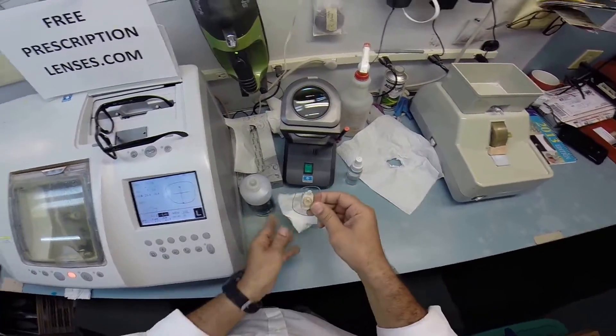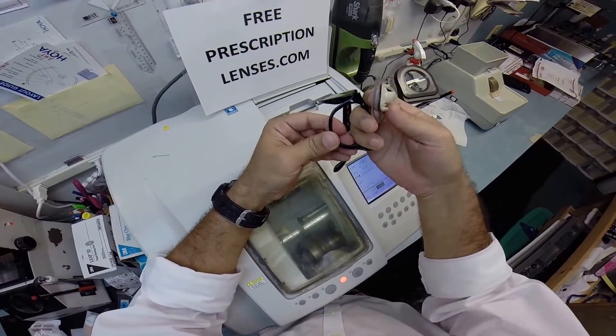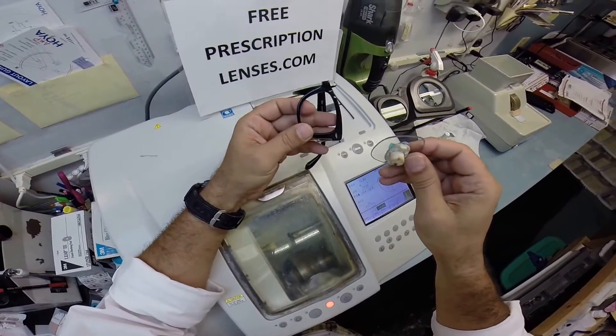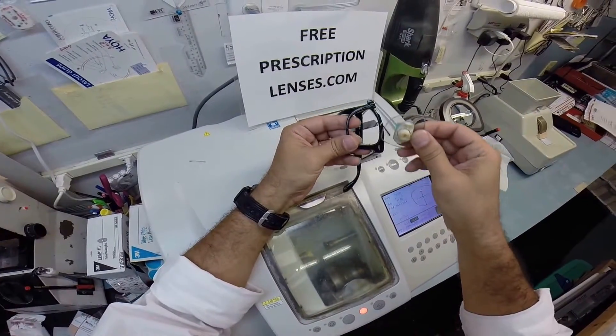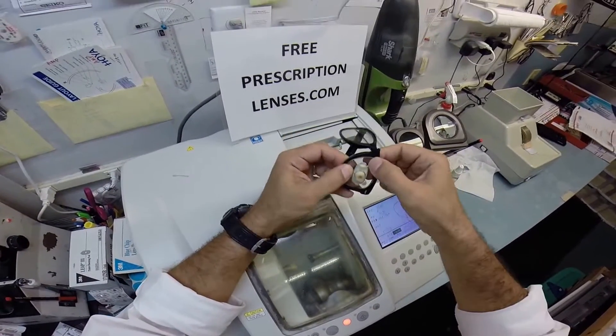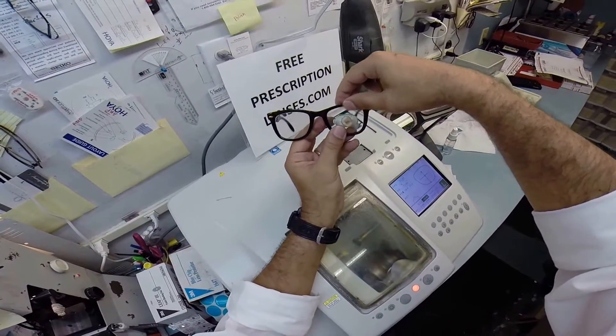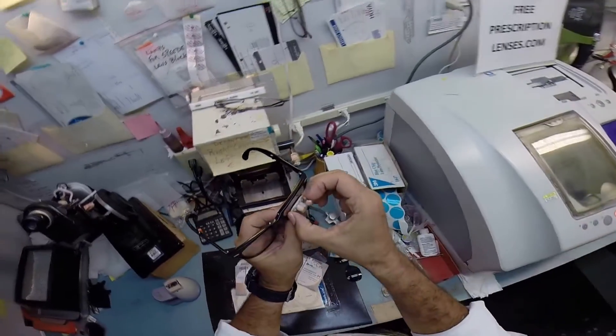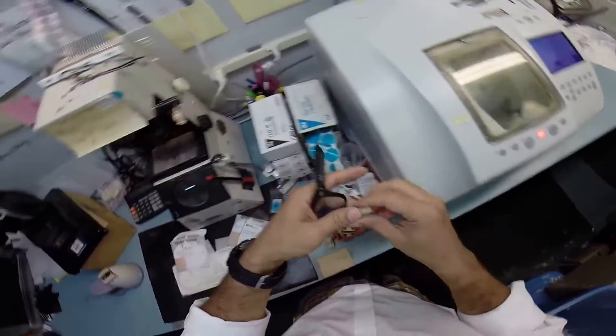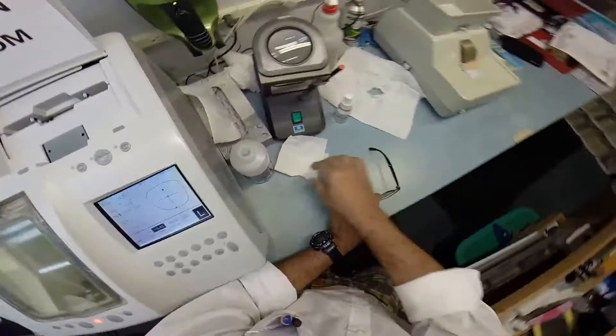Let's go ahead and get your left lens mounted. I have the left side closest to me that is empty. I'm not trying to reach across the frame. Mo, this is important if you ever need prescription lenses in the future: you just have the empty side closest to you, you tuck the lens in at the side closest to you, then using your thumbs you press down at the nose which is the thickest part of the frame and it's designed to have pressure applied there. This block is no longer needed. When you're as strong as I am, you can rip these off with your bare hands - no tool is needed. Let me pull the sticker off.